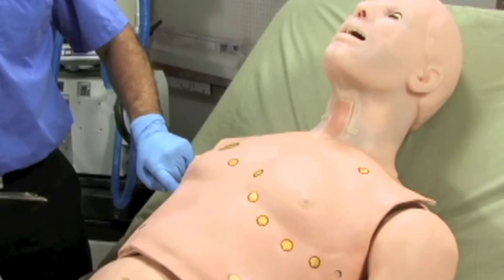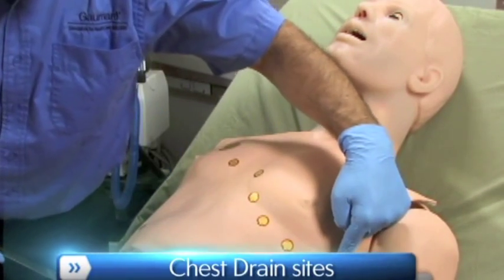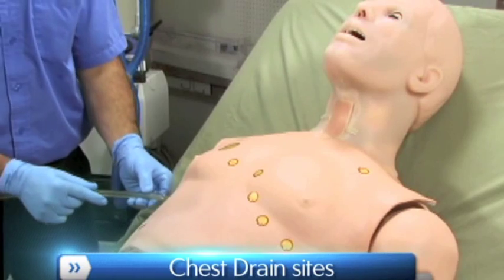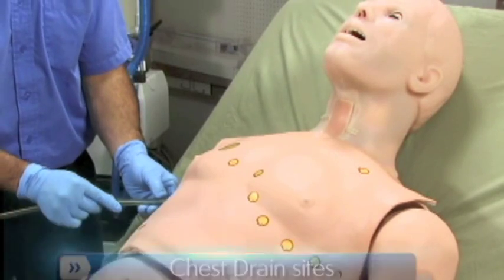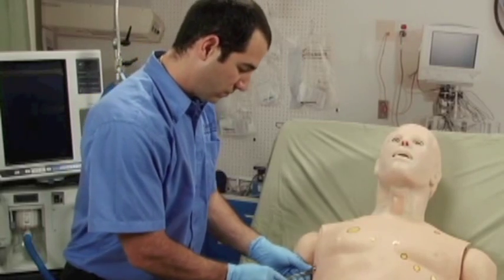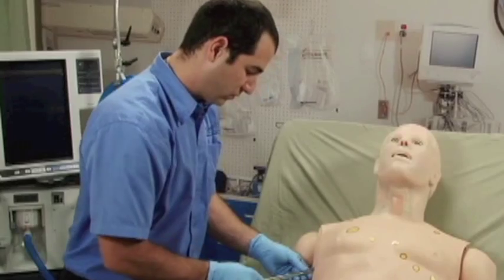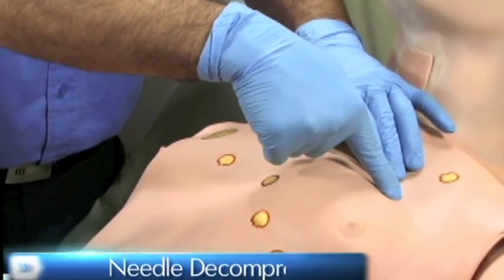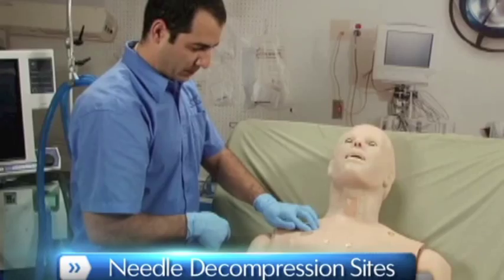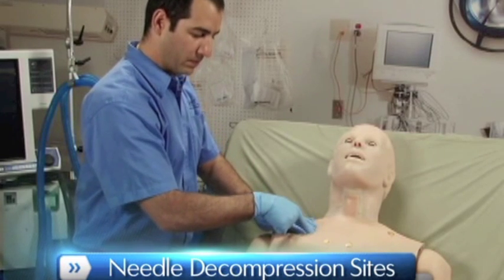HAL features bilateral chest drain sites at the 5th intercostal space to simulate therapy for pneumo or hemothorax. Alternatively, one could utilize the needle decompression site to relieve a pneumothorax.